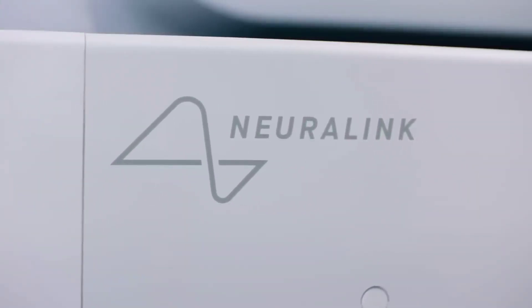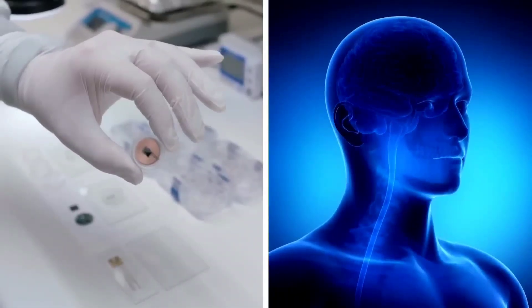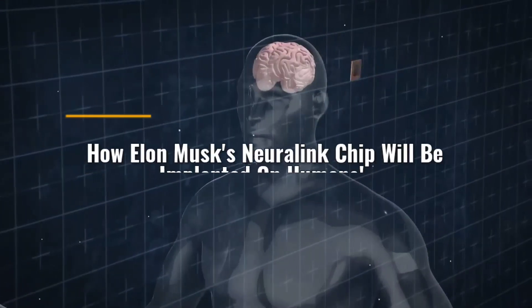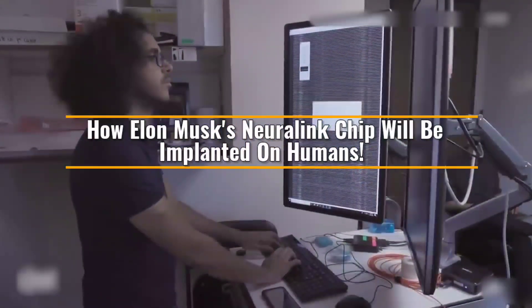And you will be amazed to know that Pager played ping pong just by thinking, and used a common joystick too. Welcome to First Class Tech, and in this video, we'll see how Elon Musk's Neuralink chip will be implanted on humans.